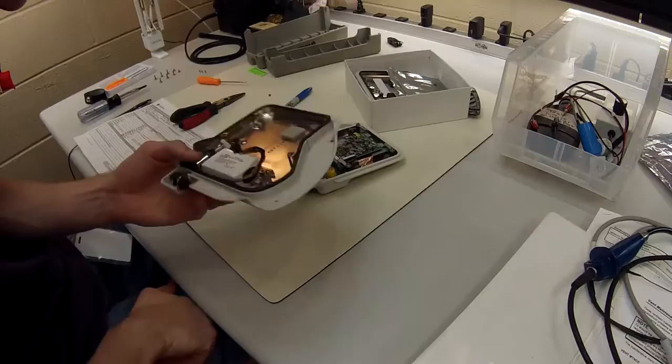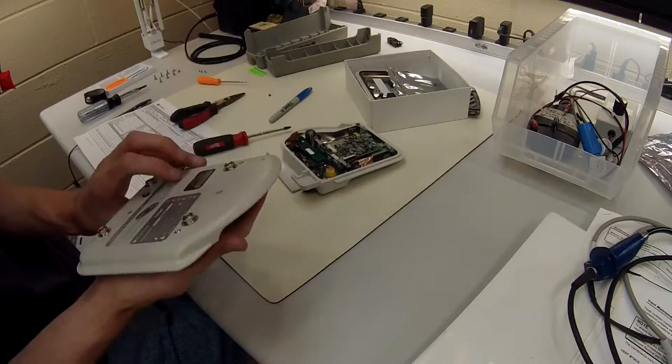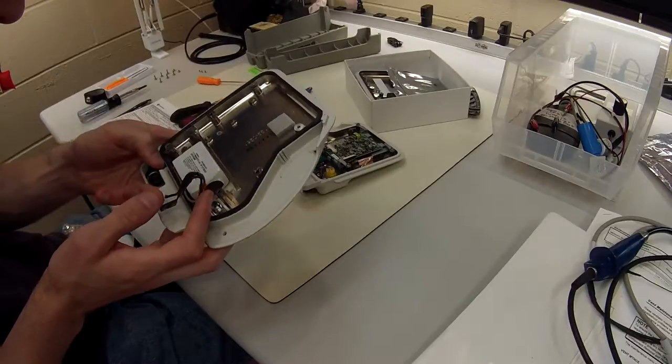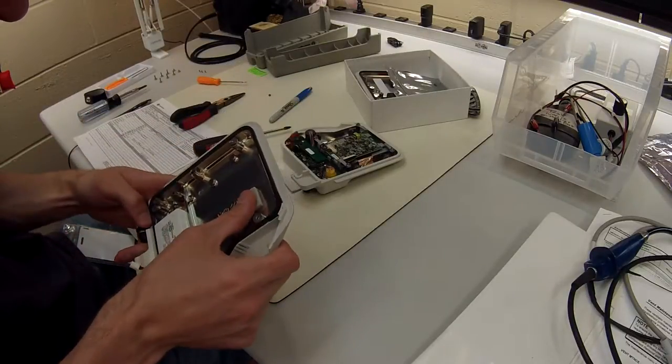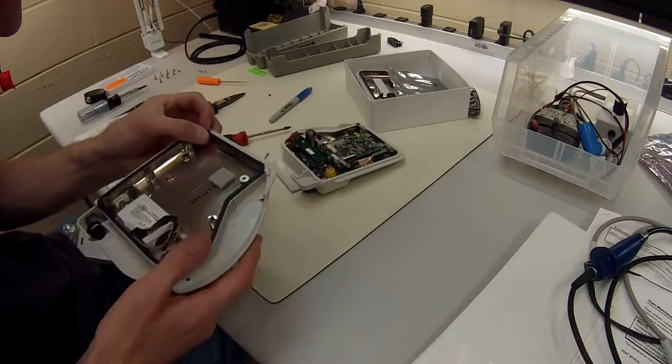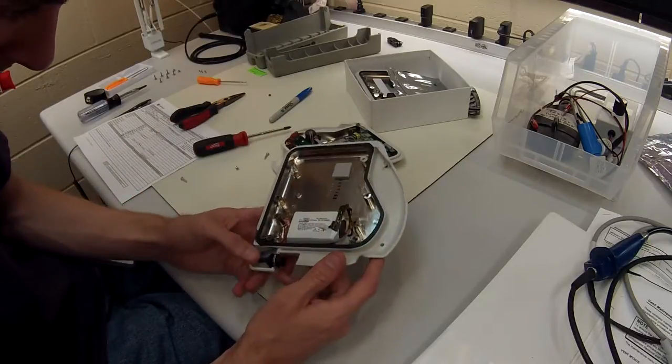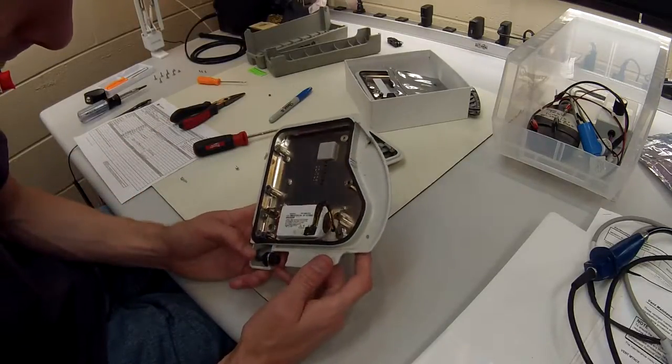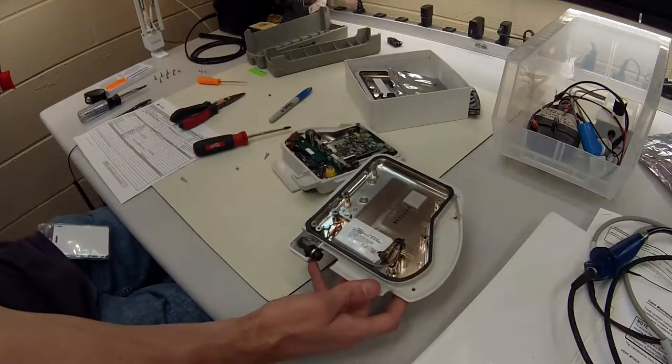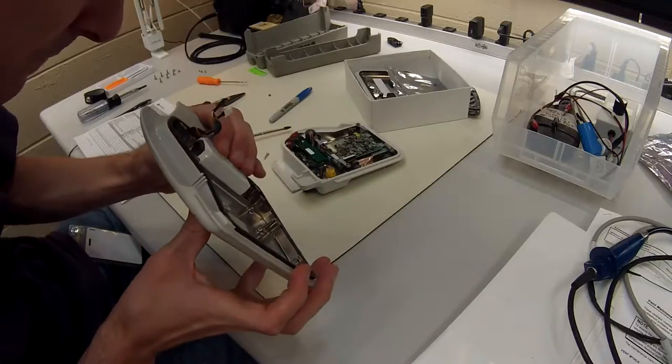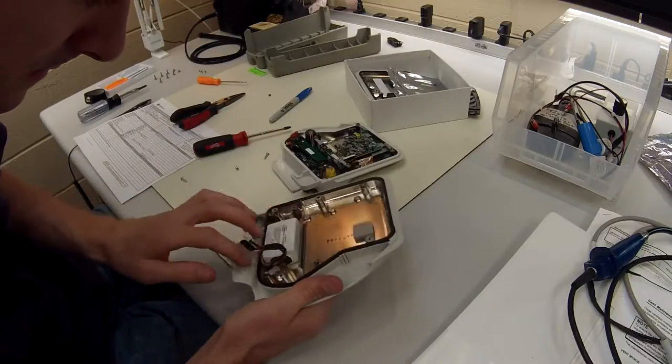All right, so here is the back end of the one I just replaced and it actually looks pretty good. I'm wondering if this is a newer back end, I'm not quite sure. But this looks a lot better than other ones that I've replaced. So I'm not 100% sure if this is the case.